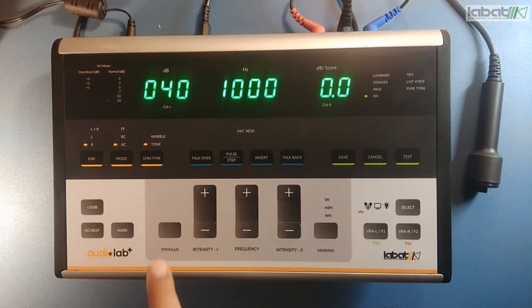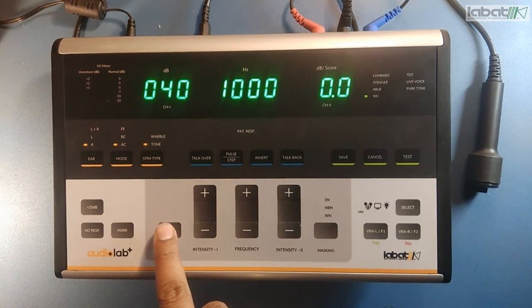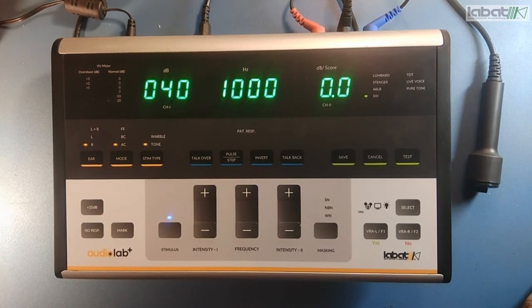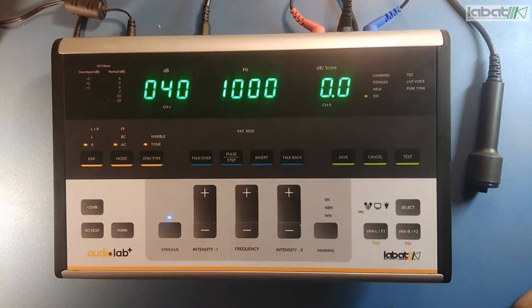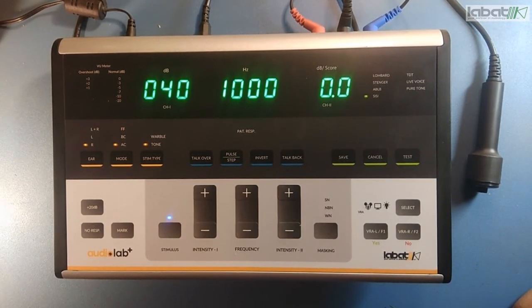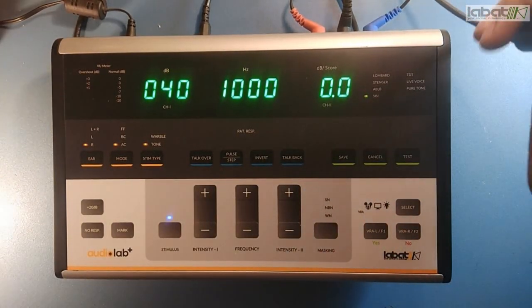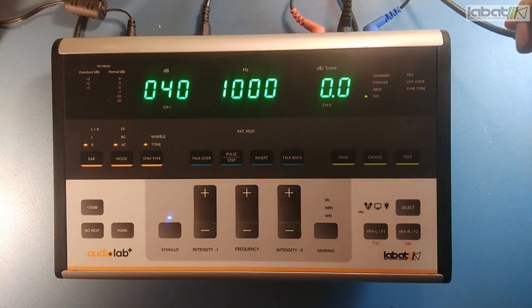So I am setting it at 1k. Now I am starting the test. The test is started. You can see the increment will be from 40 to 45. Right now the percentage value here is 0. It will stay 0 until and unless the patient gives a response. So now I will start giving the response whenever the change will happen.